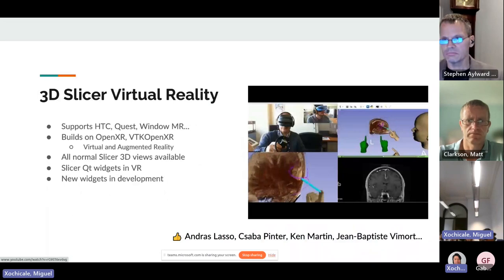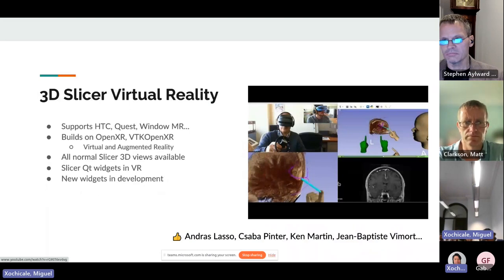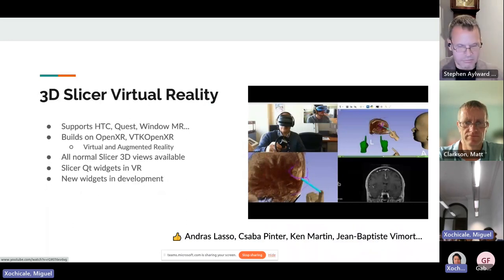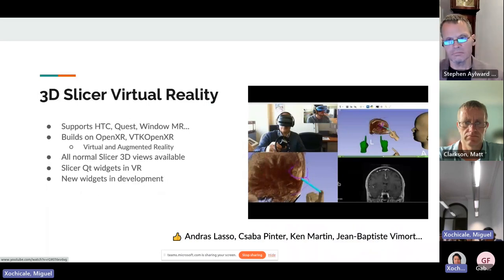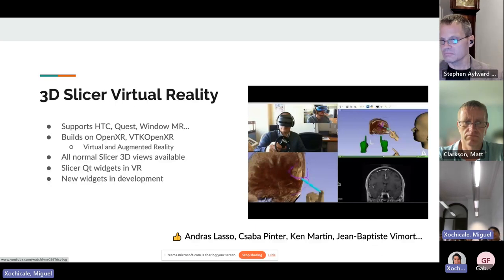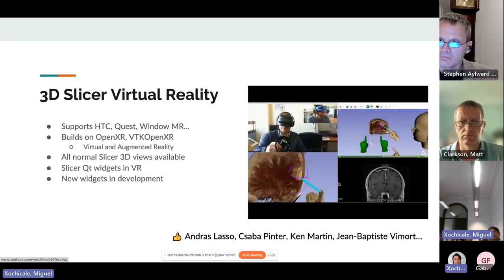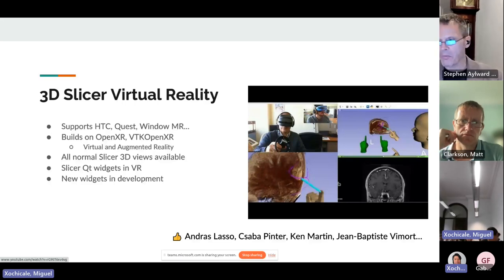Here's an example of virtual reality. The VR community has been evolving and the software side has been a bit of a pain, but now there's OpenXR and Slicer uses VTK OpenXR. As of a week ago, it's all working again — people who tried to use it in the last year were referred back to an older version, but the current version now works. What's nice is that what you see in VR is just the 3D view of Slicer. Even more impressively, after years of work, any user interface widget visible on the desktop — traditional buttons and menus — can now be seen as a textured plane in the VR environment and interacted with via a controller like a laser pointer. So it's pretty fully functional.